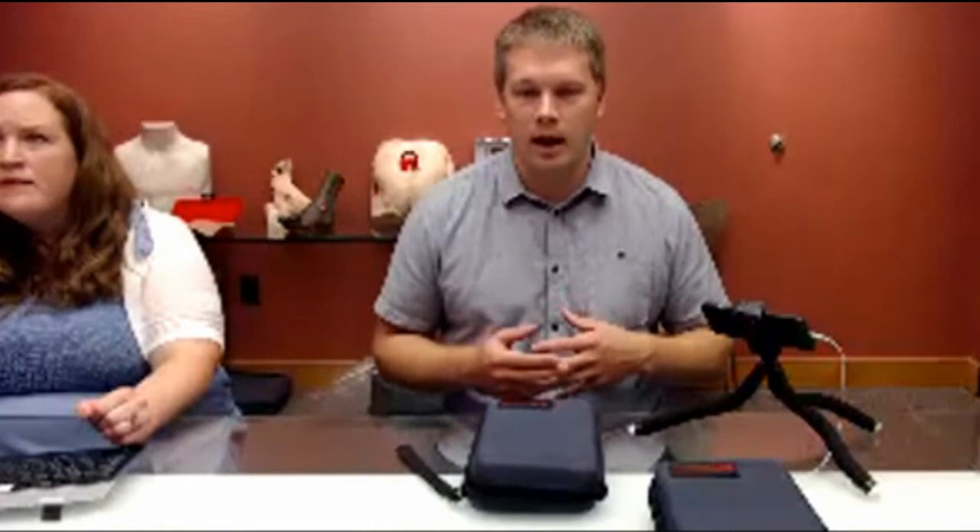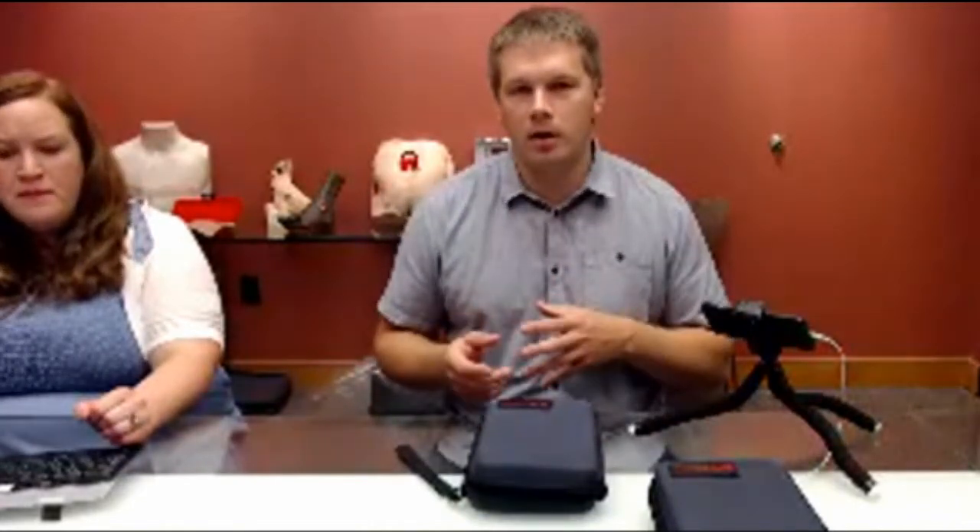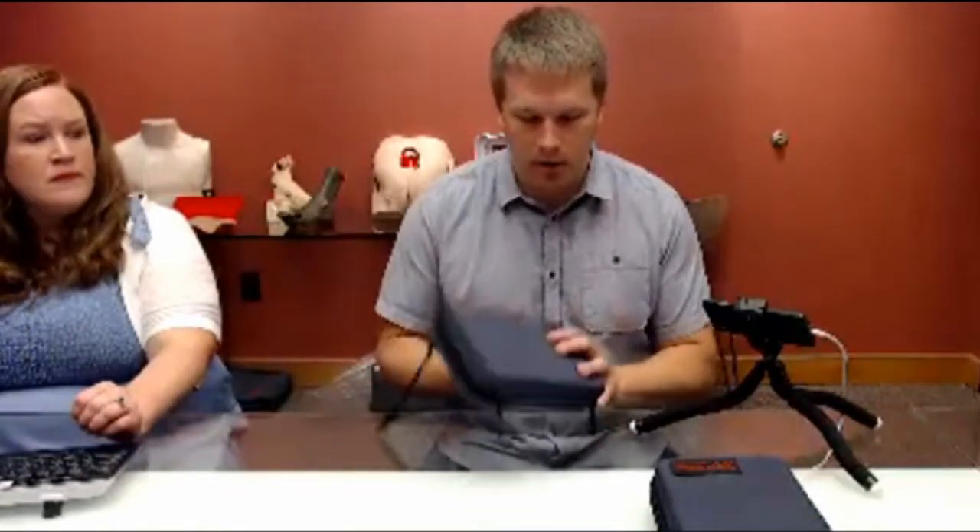So to get going — if you don't know VADA, we make various medical training models. We've done stuff from basic IV access, central line care and infusion, wound care, ultrasound, and several other areas. Suturing is an area we got into a few years ago. We did that primarily because a lot of the suture pads we saw out there, while they're very inexpensive — some are $20 to $30 — the quality of them is pretty low. That's okay for some students, but people really getting into a specialty or a focus that uses suturing a lot need something more realistic that they can do more advanced suturing techniques on.